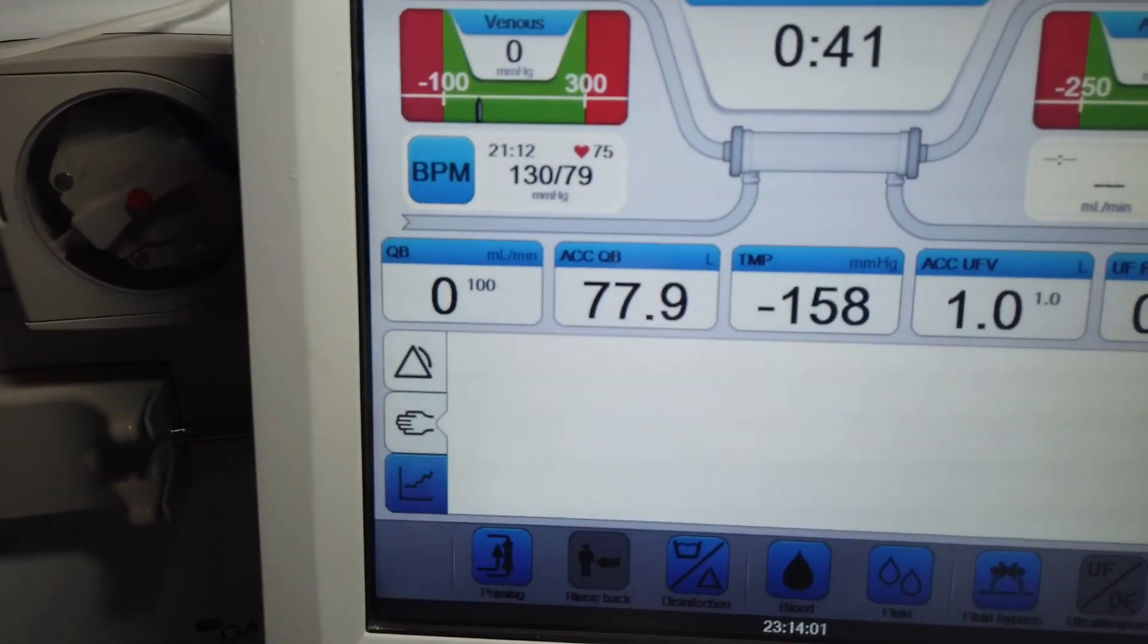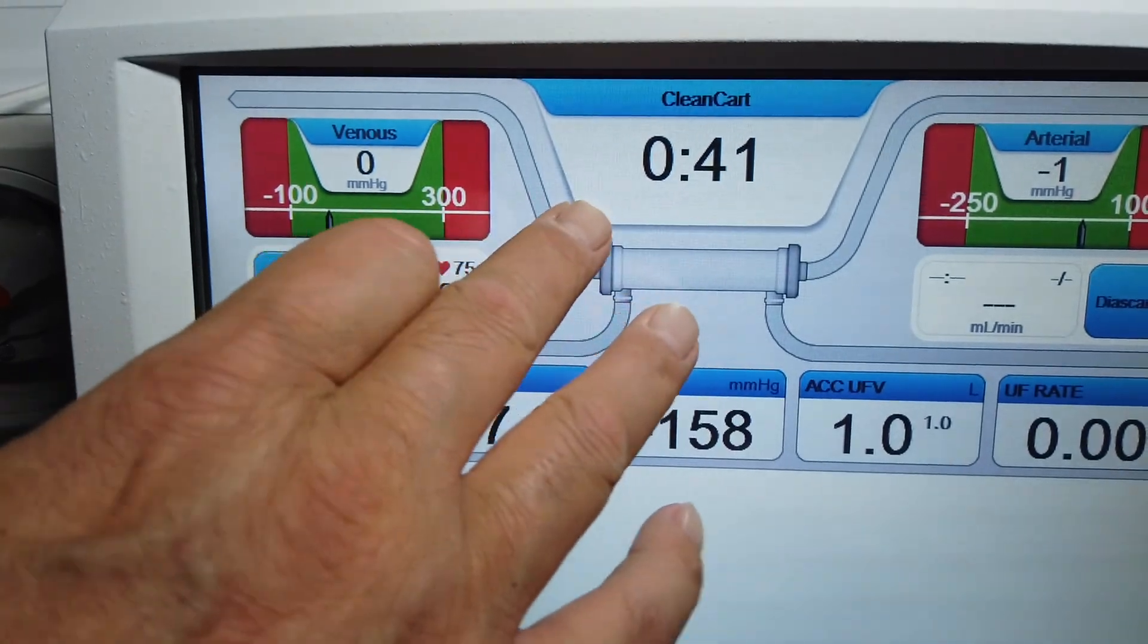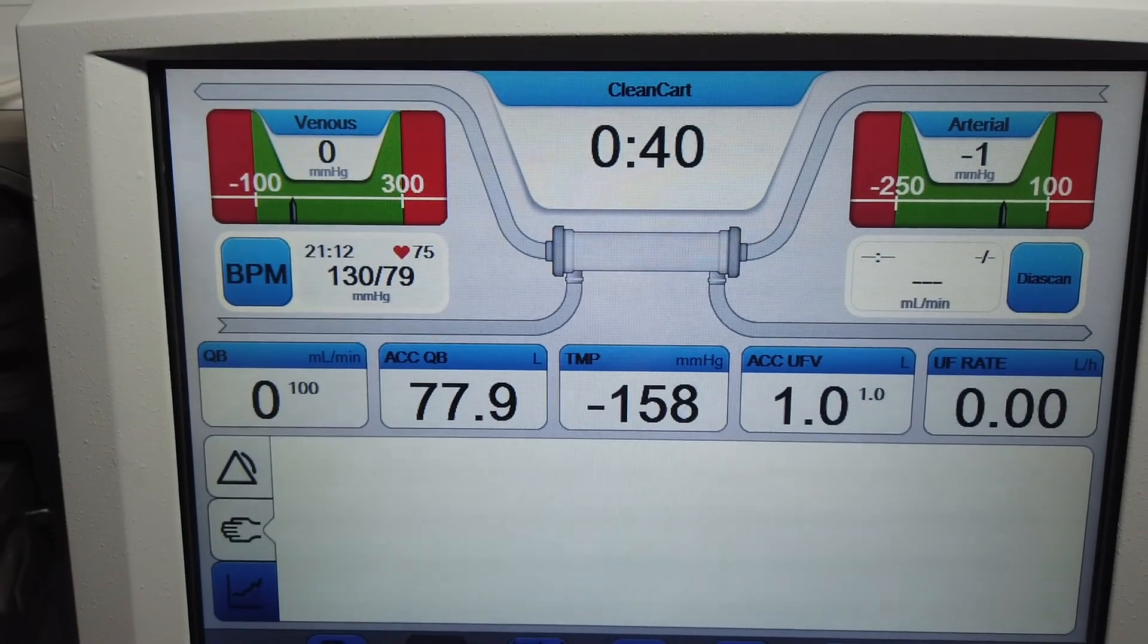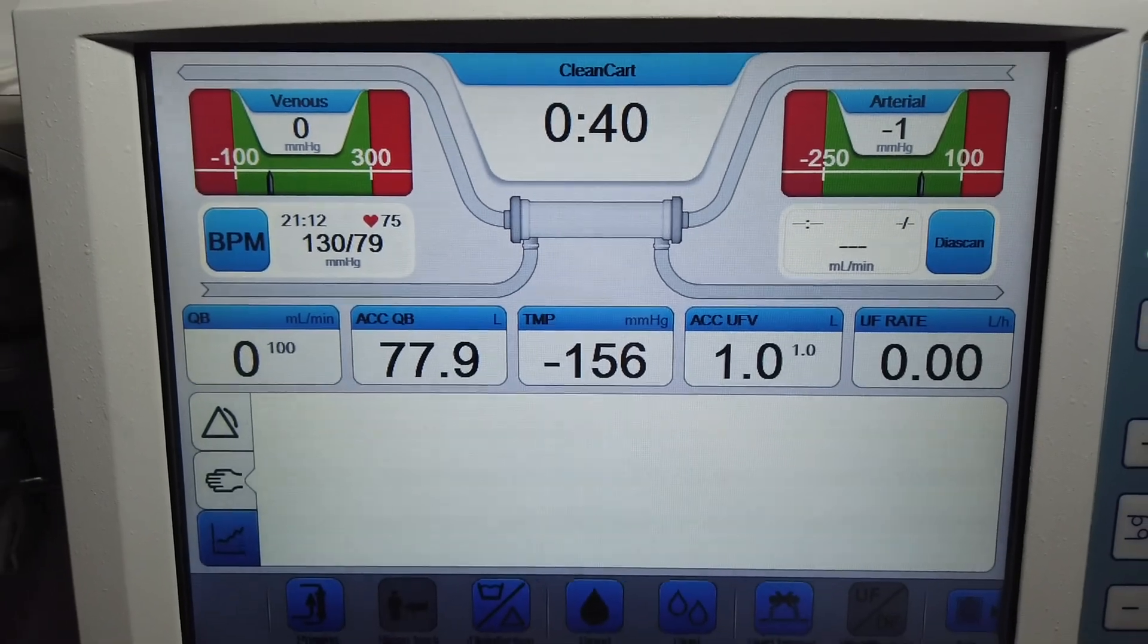Once the clean cart is attached, the clean cart now starts, and then the timer will count down to zero. Once it's zero, then the machine has done the heat disinfectant.